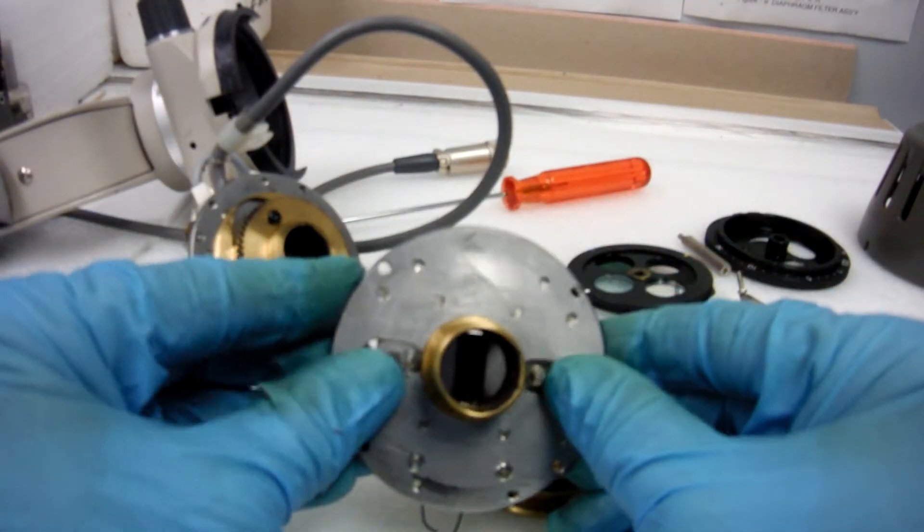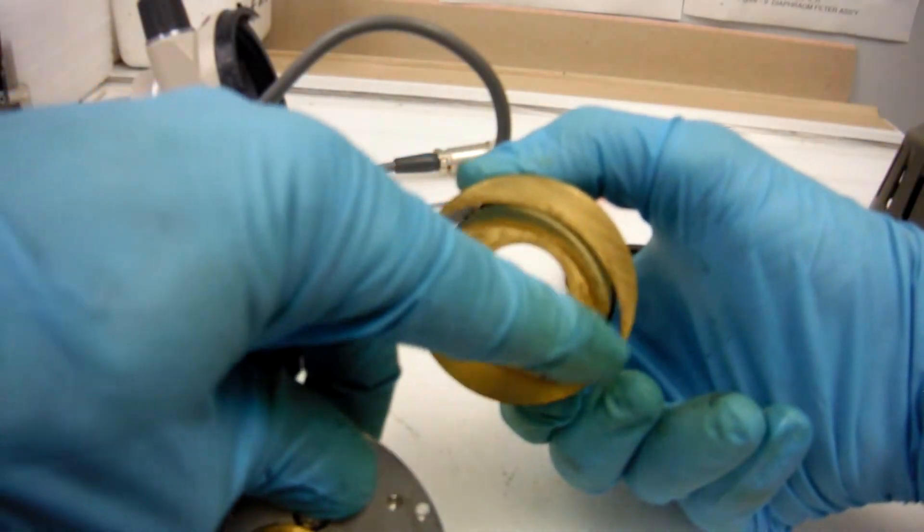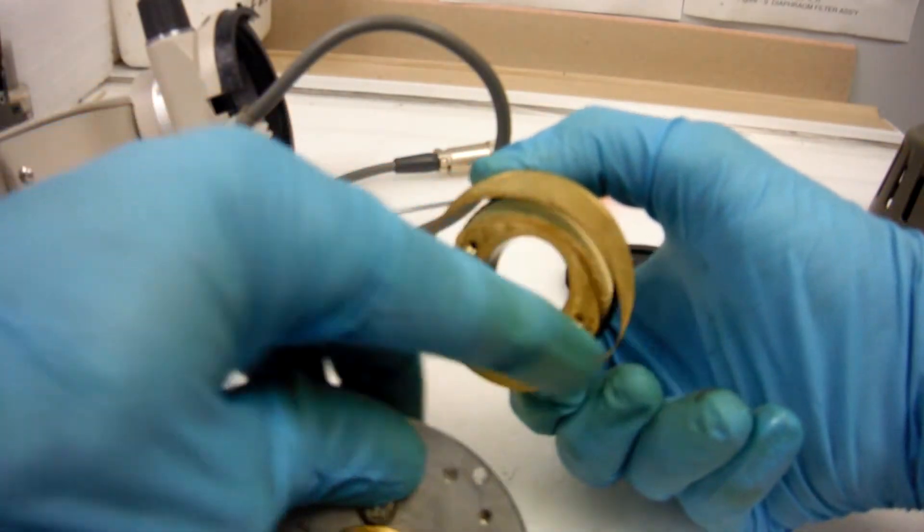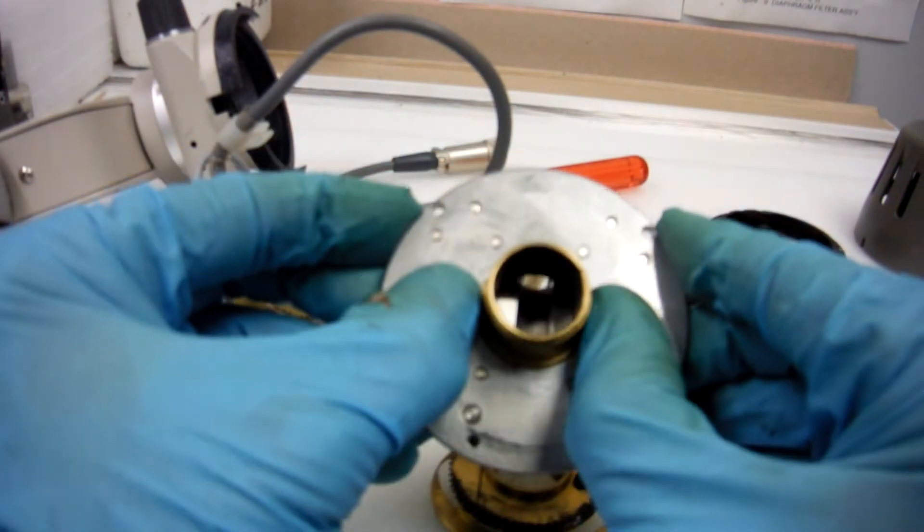This is how this works. These bearings follow the cam track. Go in and out, opening up your slit.